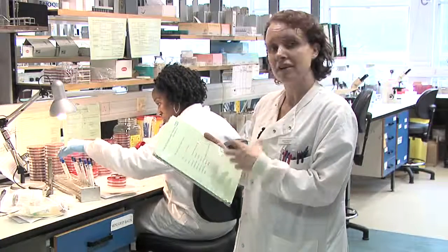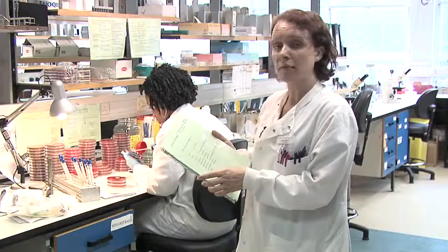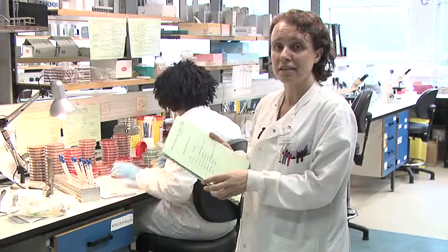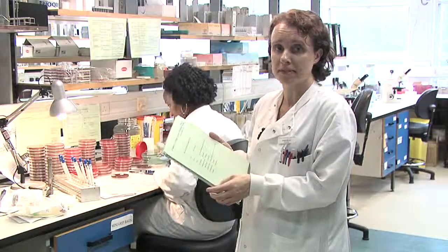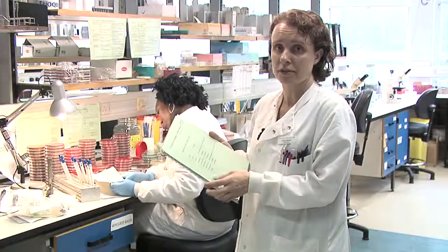We would check the demographics and the details of the sample, and then culture the sample onto various media, using sometimes basic nutrient media such as blood agar and other selective media dependent on what we want to grow from that particular sample. We also do microscopy on those samples, on specific samples. We would do gram stains and look for the bacteria under the microscope.